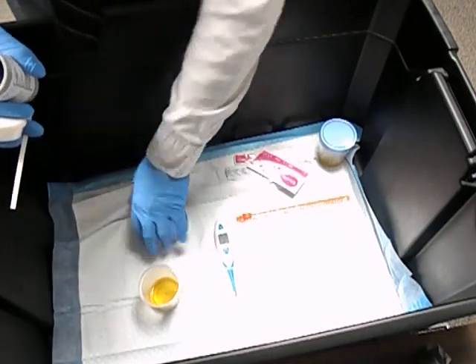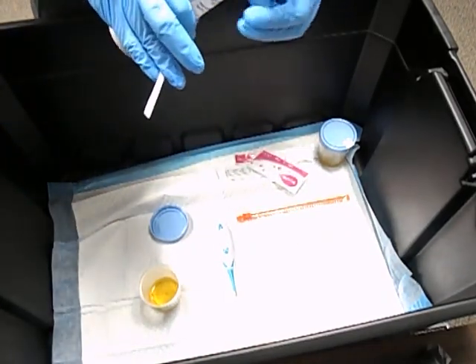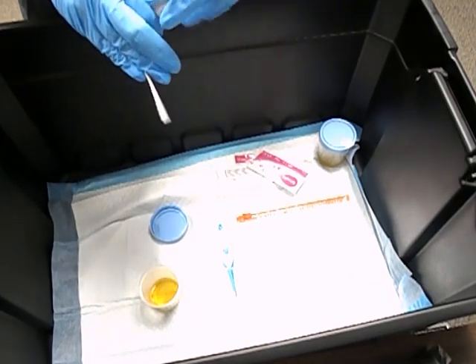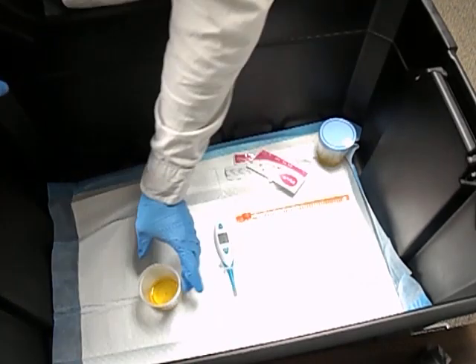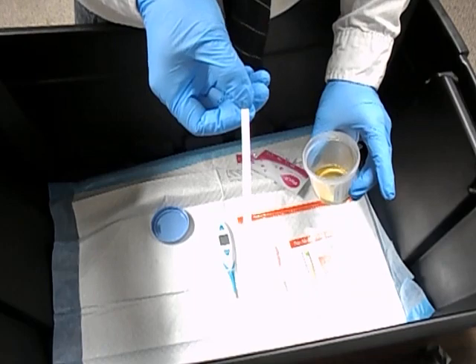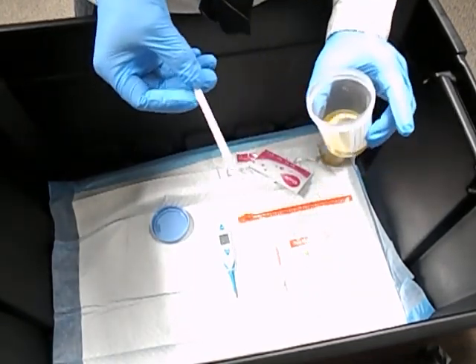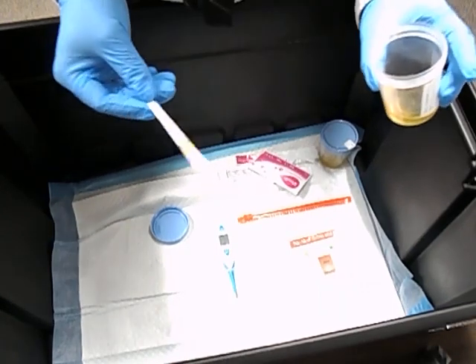Lastly is the validity test. Once I take the validity test out, I throw the bottle away to make sure it stays clean. The validity test has seven boxes — make sure when you dip it in all seven boxes are submerged, and count to three seconds.